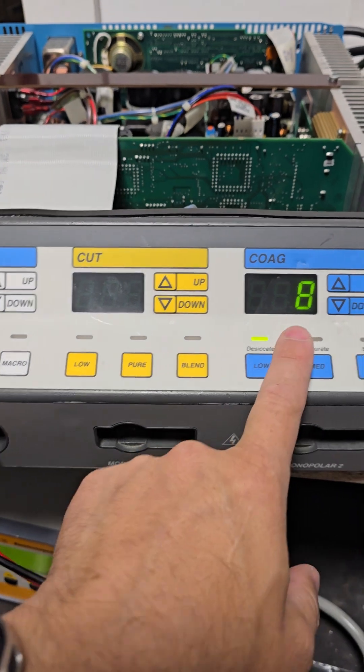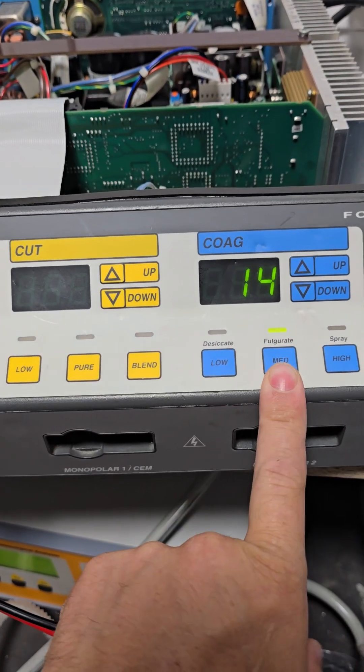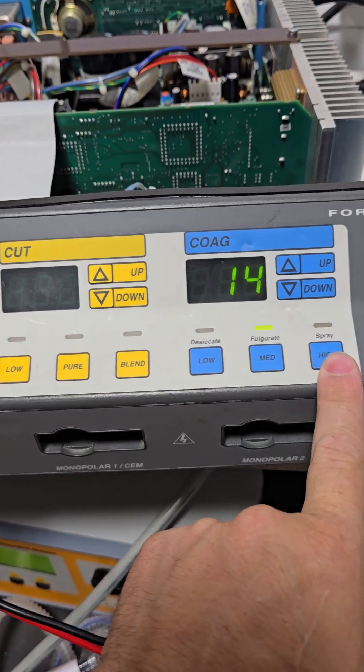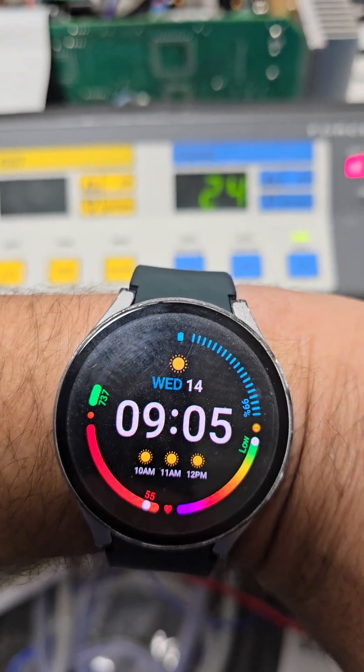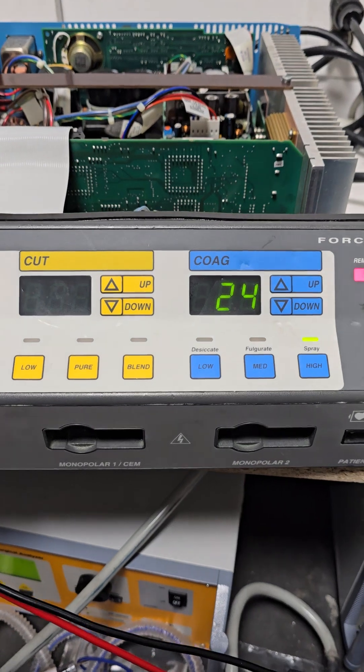Two, this is your date. August, press this for the day, 14th, and high for the year. There you go, that is today, 9:05 Wednesday, 14th August 2024.